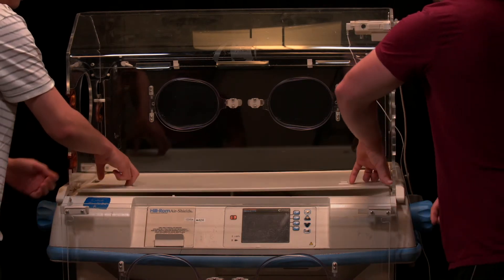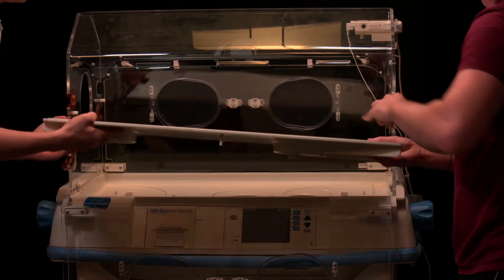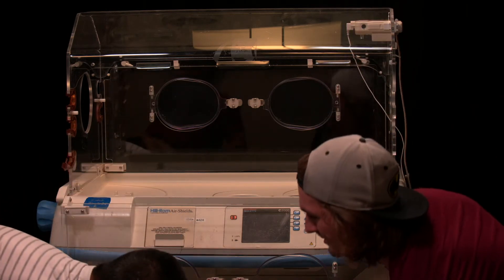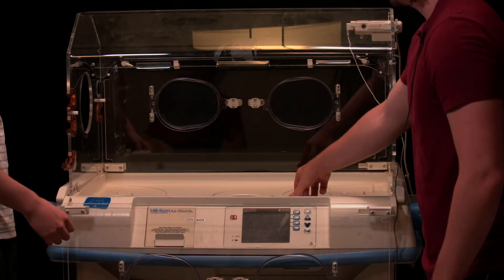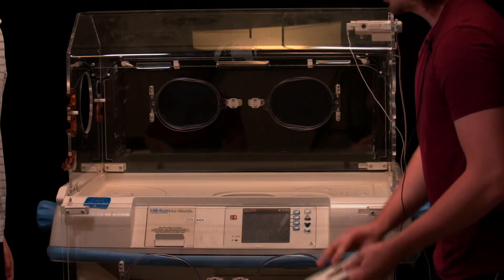Under that is the cover, which can be slid out. And then you can have access to the heater and impeller unit.